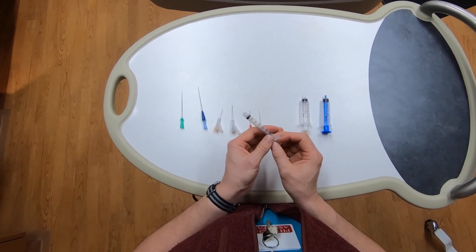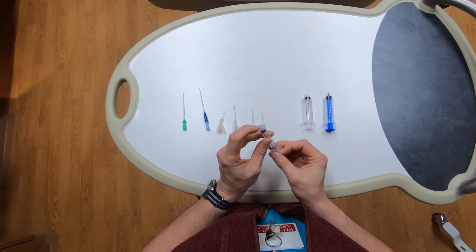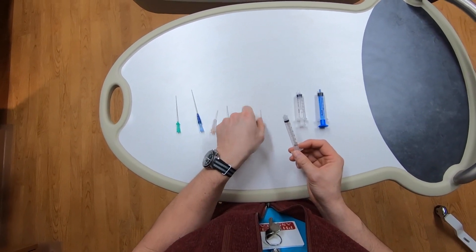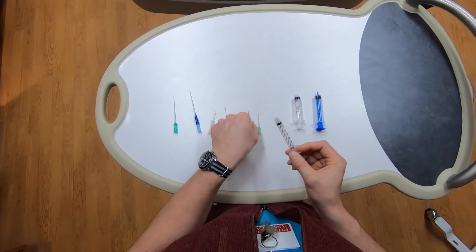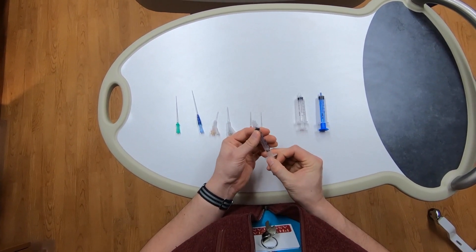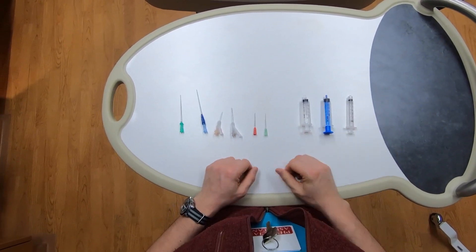Finally, we have a smaller syringe used for lidocaine. You see this one has a luer lock, so it can be screwed on to your fill needle and then your smaller needles, and your needle's not going to slip off as you work. And there you have it.